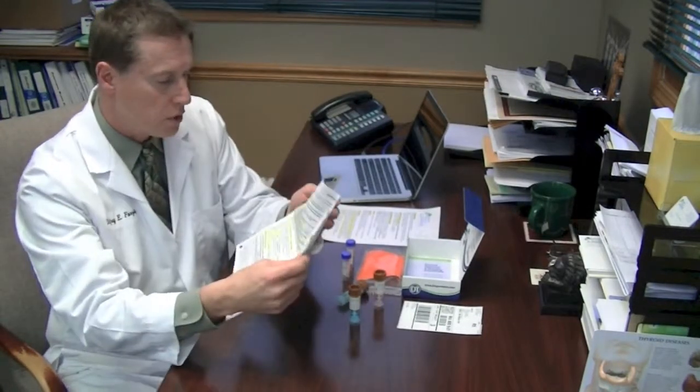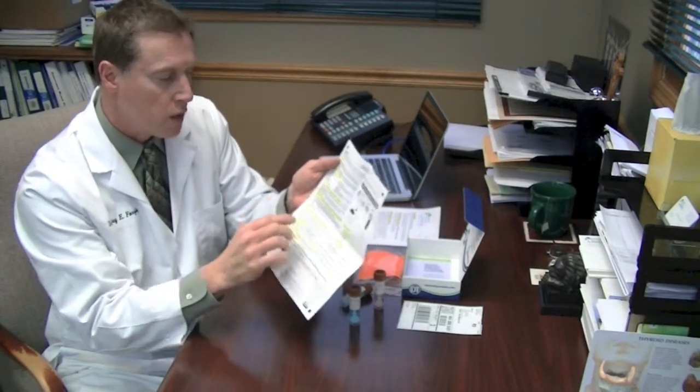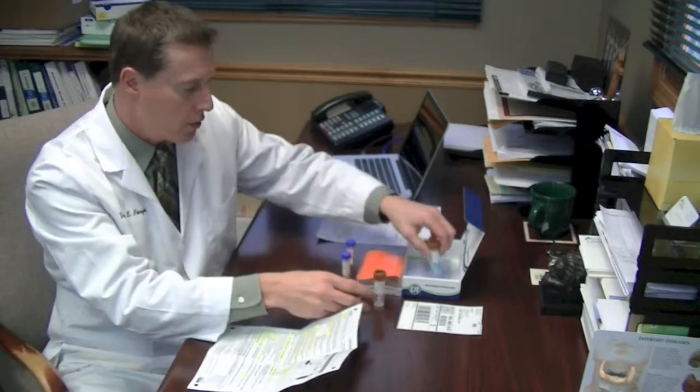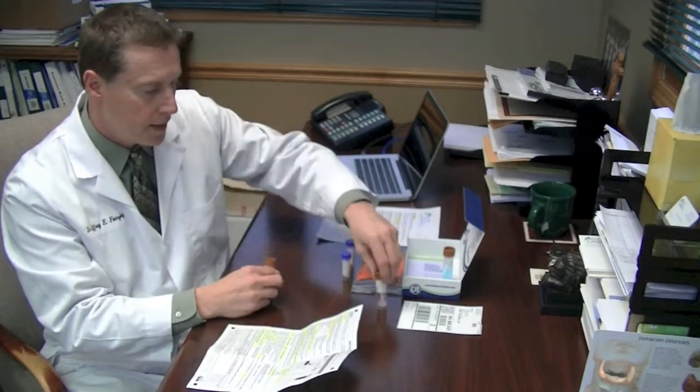So the next day, and you're also going to put the date collected on here as well. So day 2, the next day, is no testing. You're going to skip a day. So the third day, what you're going to do is take the other, this should be in the refrigerator for those 2 days, take the other B vial and the A vial.